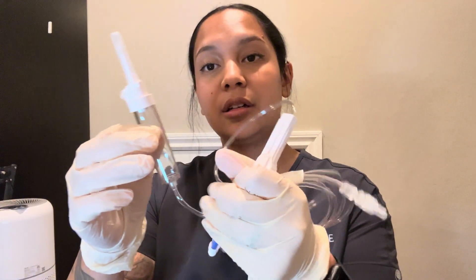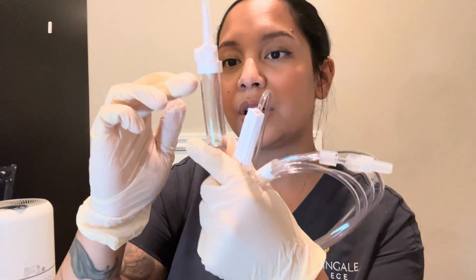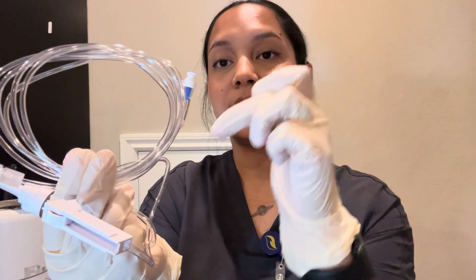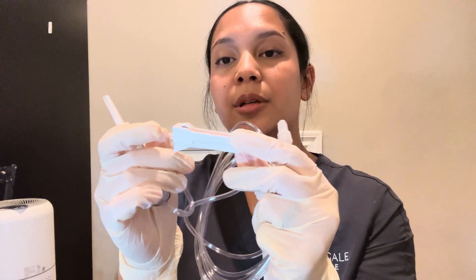Over here we have the spike chamber. I'm going to keep this capped until I'm ready to spike my bag. Over here is the drip chamber. Here is the roller clamp. Here is the white port — this is where we connect the piggyback — and this is the adapter which goes to the patient. The roller clamp helps us control the flow of the drops.